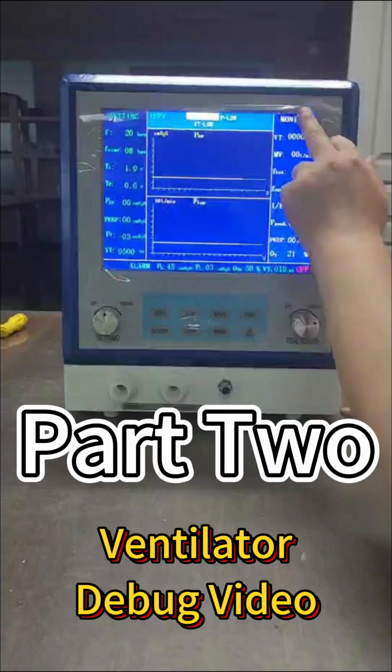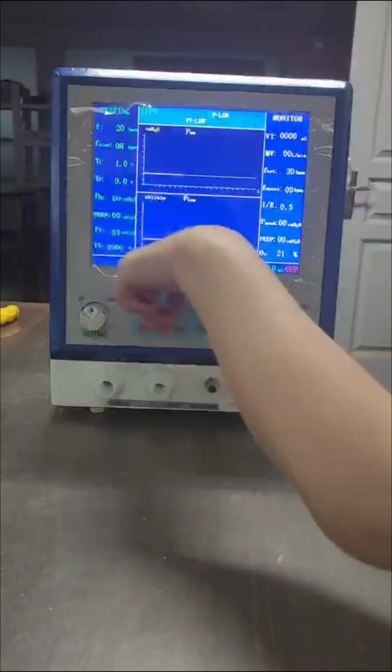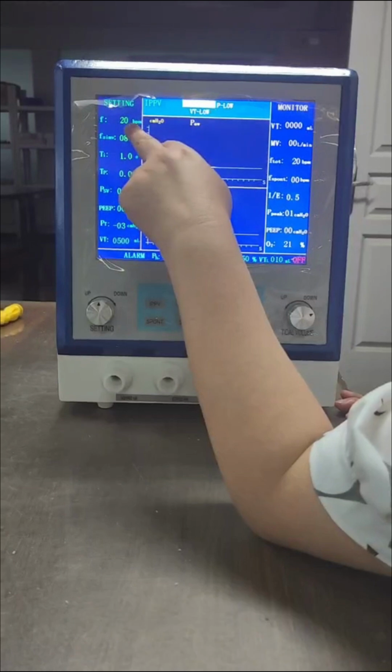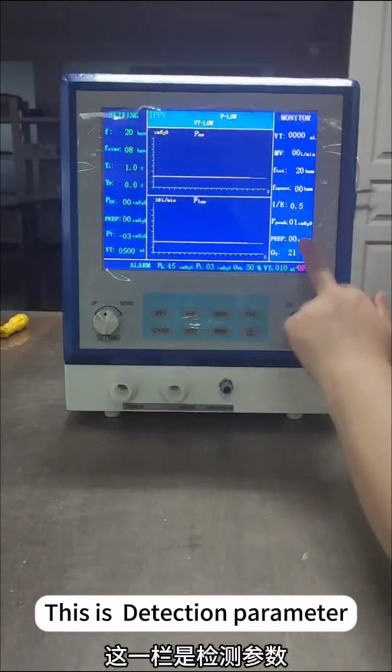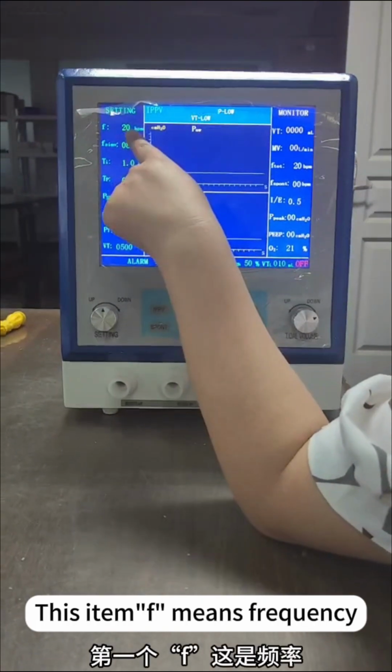Part 2. Ventilator debug video. This is the initial interface. This indicates that the machine is working normally. This column is setting parameters. This is detection parameter. This item F means frequency.